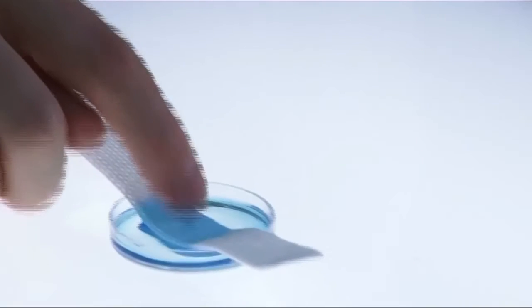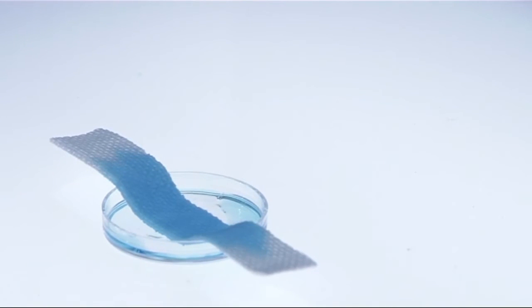When the gauze comes into contact with the fluid, it wicks to the end of the sample, moving beyond the walls of the petri dish.